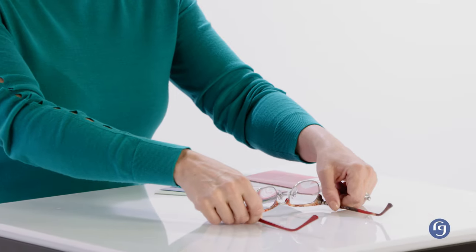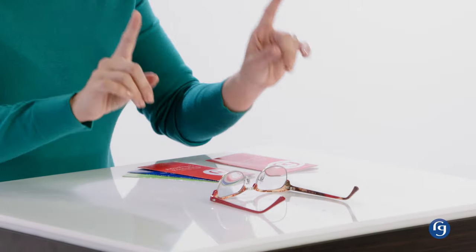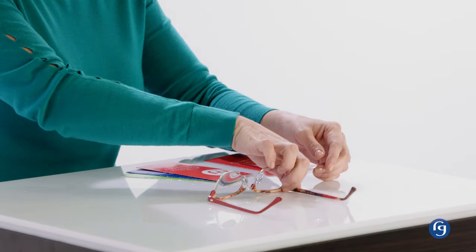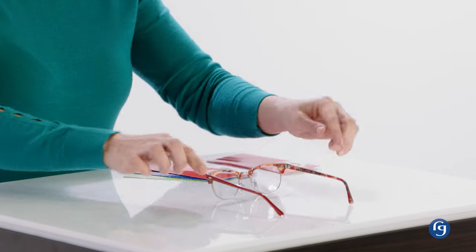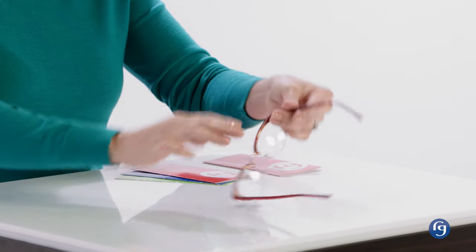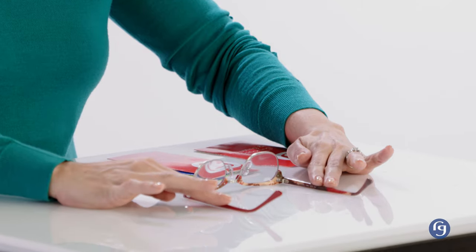First, glasses that sit crooked. The 4-point alignment that I mentioned earlier is the starting point. When I rest the glasses on a flat surface, both right side up and right side down, all four points meet — here and here. And if I turn them over, they all meet. If I give them a wobble test, there's no wobbling — no gap, no wobble — these are adjusted properly.